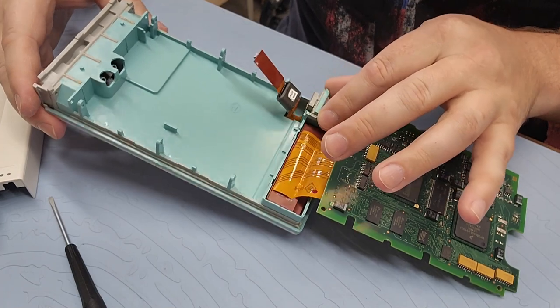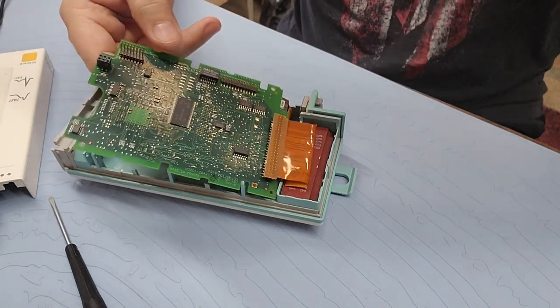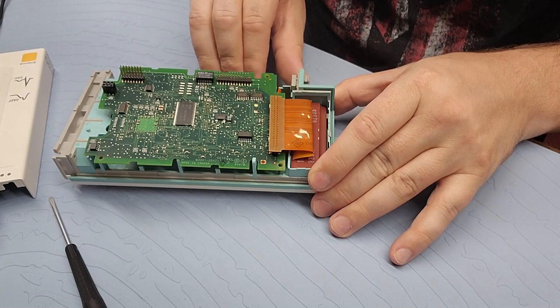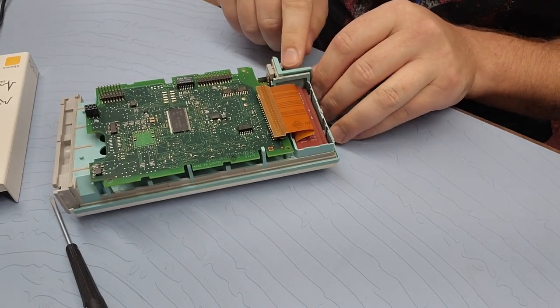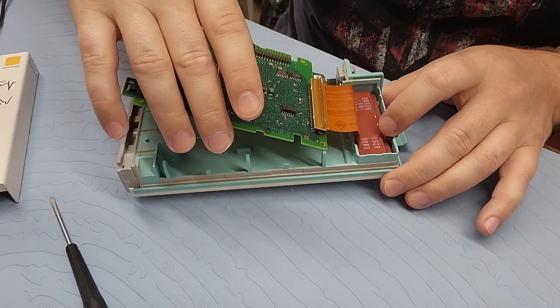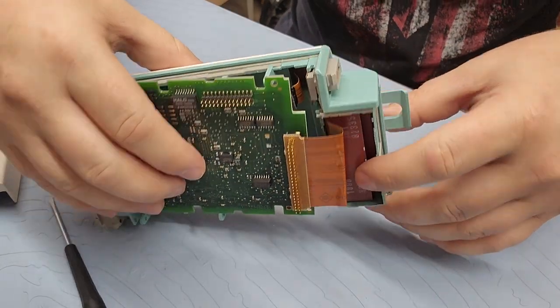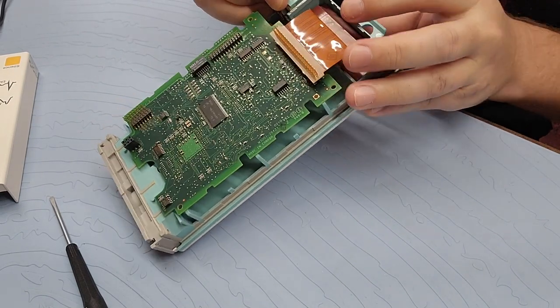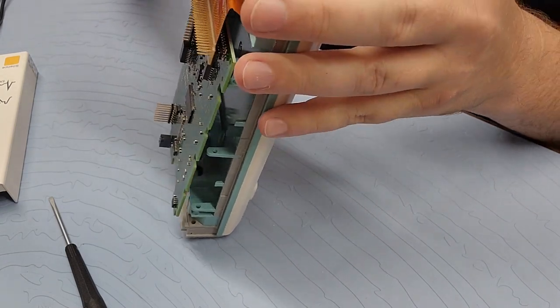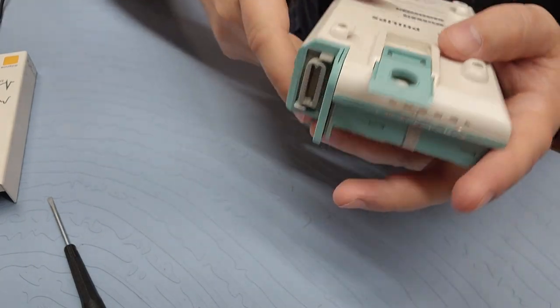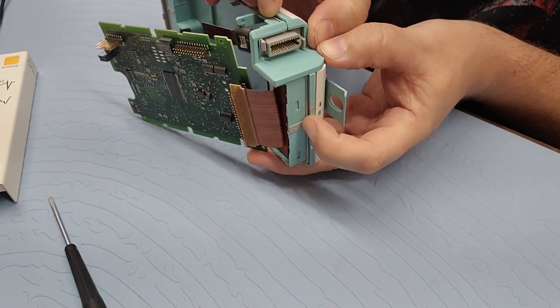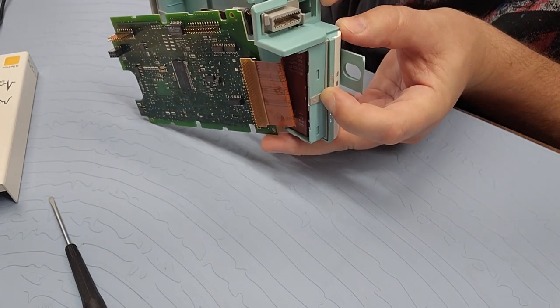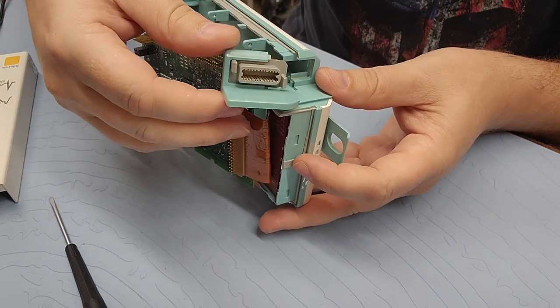Anyway, what can I see down in here? This module right here will come apart quite easily. This whole frame is going to separate. It's been a long time since I've done it. But still, I would like to do it for you guys in order to get this little port out. So, you can see that there's a dovetail right here. And this whole entire unit will slide off. And that will include this port. There it goes. It's been a while since I've had to do it. There. It just required a little bit of up force. Very genius design.